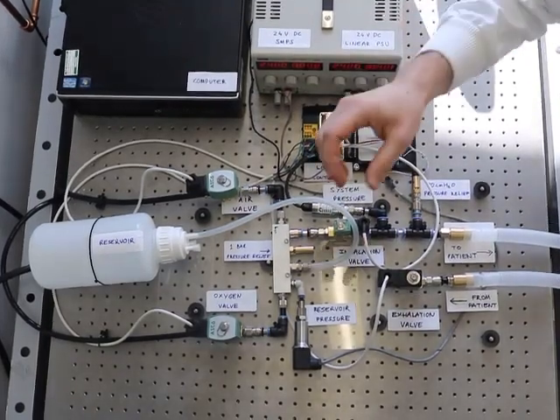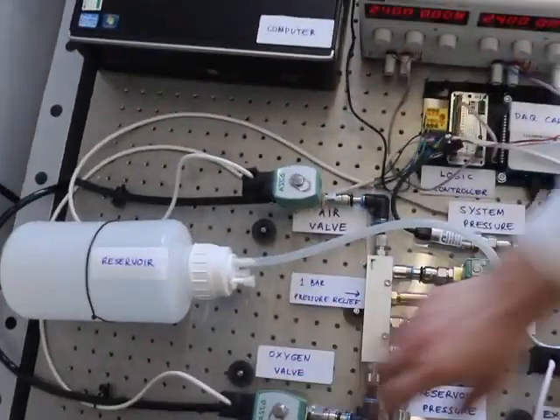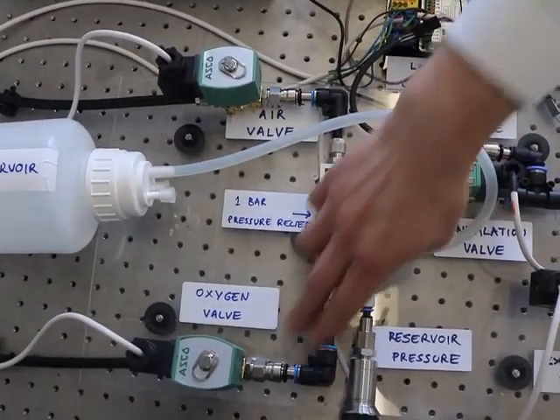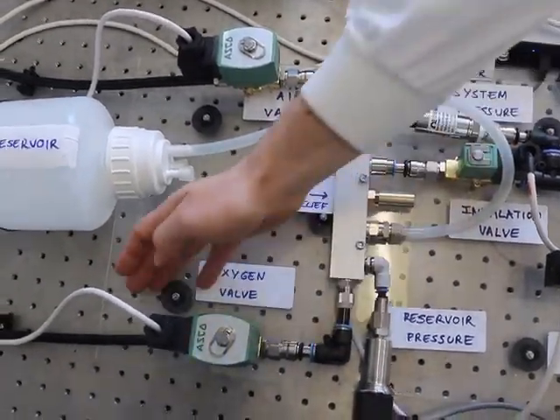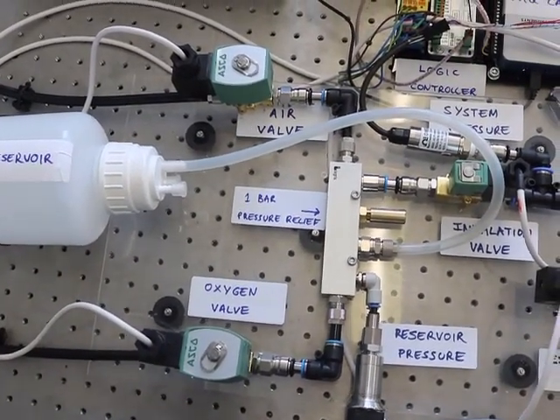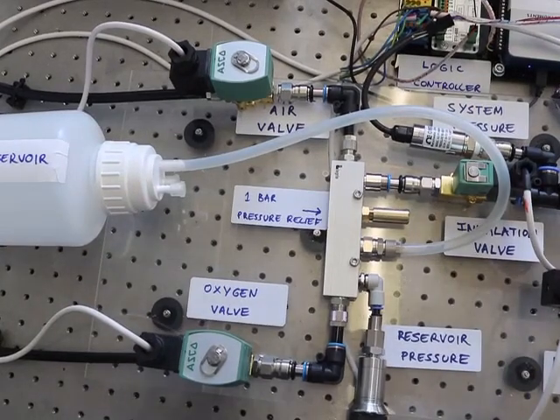But the critical components here are the valves. So we start with the oxygen valve. This valve has quite a high flow resistance, so the pressure downstream on this side is much lower than the 4 bar that's applied upstream of it. And we can open that valve to allow as much oxygen as we want into the reservoir.